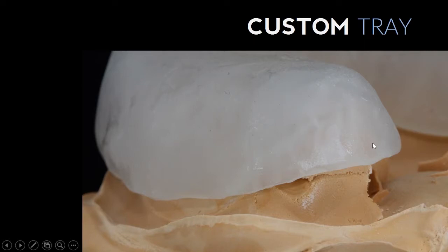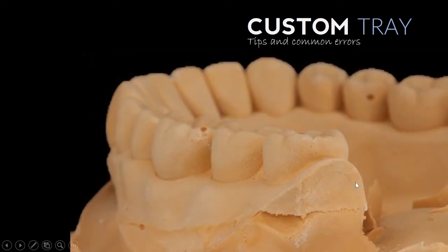Well, what do you think that's going to feel like when you start to seat this tray into the patient's mouth? Obviously, this portion of the tray here is going to dig into that area because what we see in the cast isn't 100% reflective of what we see in the patient's mouth.